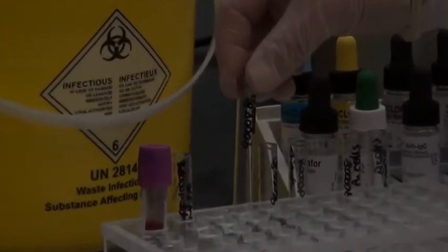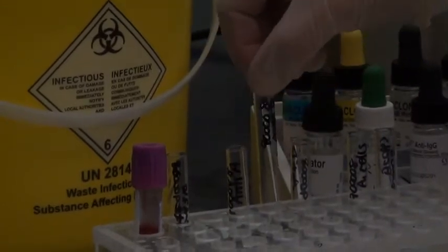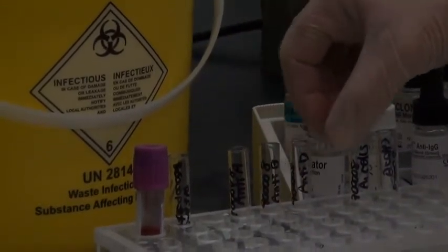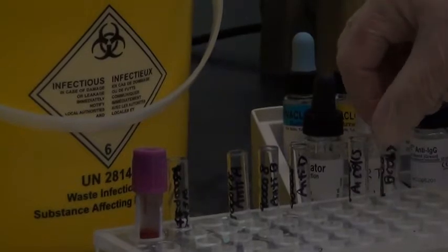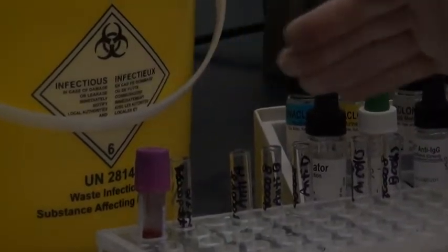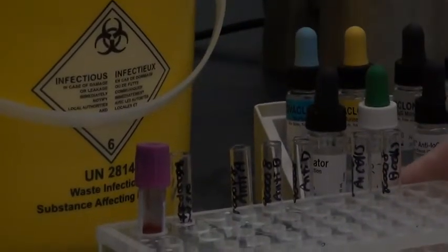And I've got tubes with the session number, anti-A, anti-B, anti-D, A1 cells, and B cells. So those are the tubes that should be set up for each of your patients.